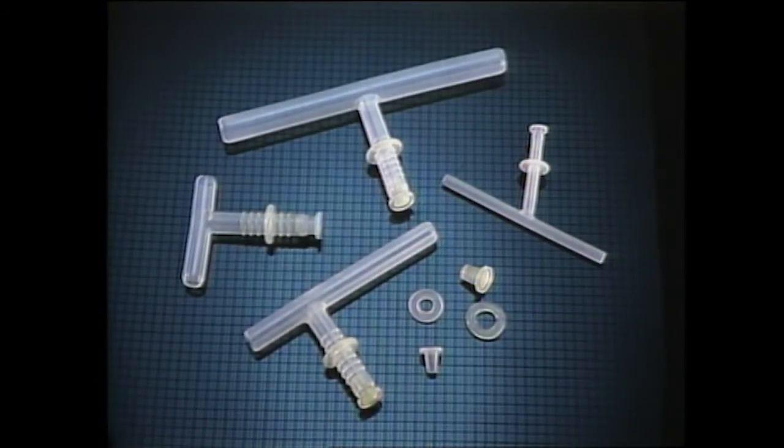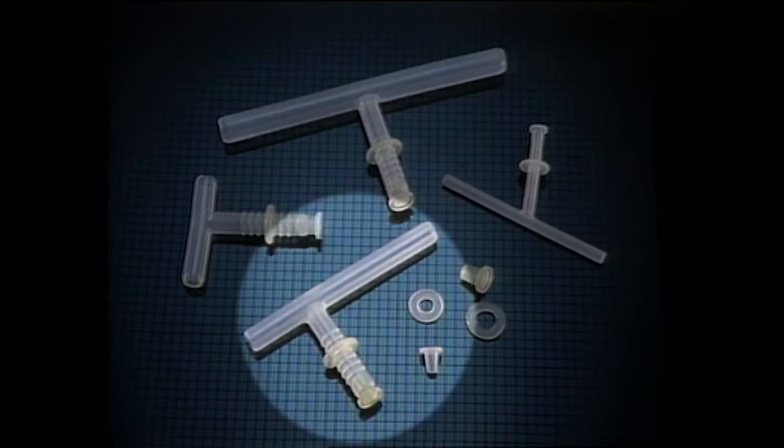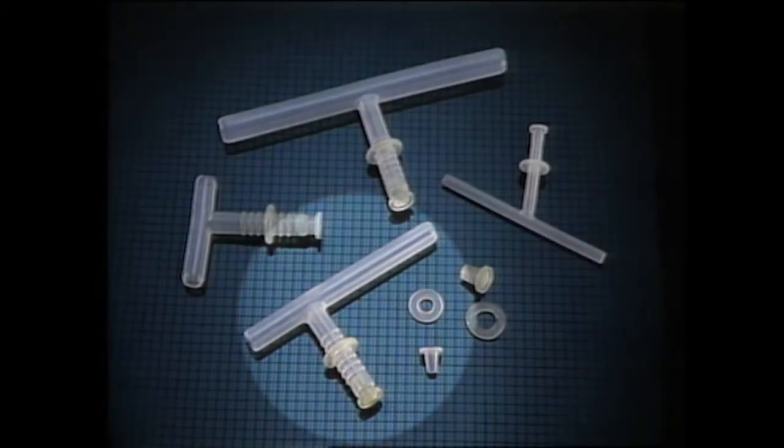The 5200 series thoracic safety tube has been designed to provide all the advantages of a safety tube with an extra long limb for thoracic applications. As a life-preserving device, it can be kept in place for many years while stenting thoracic tracheal stenoses which cannot be repaired surgically. The thoracic safety tube is available in sizes 10 through 15 millimeters.